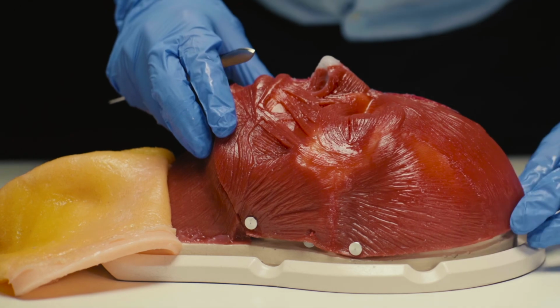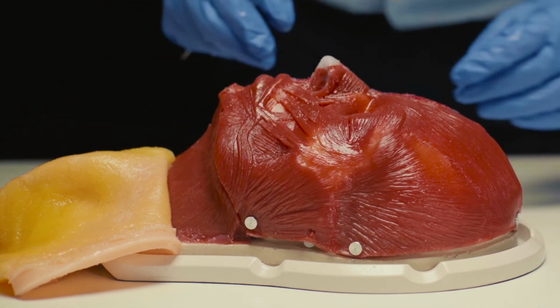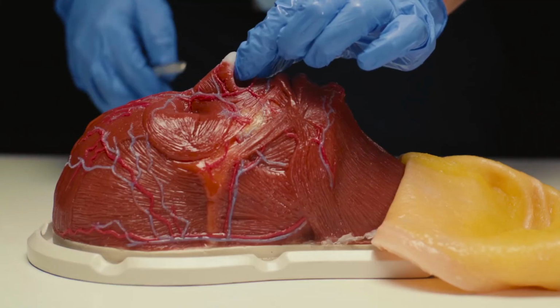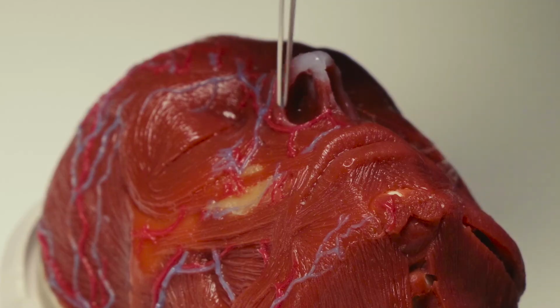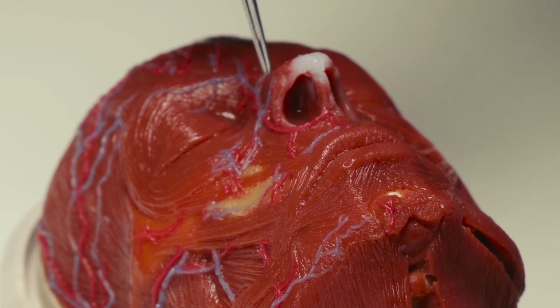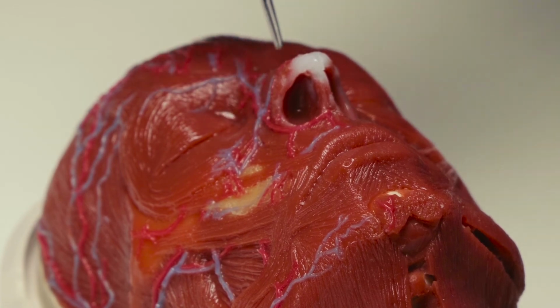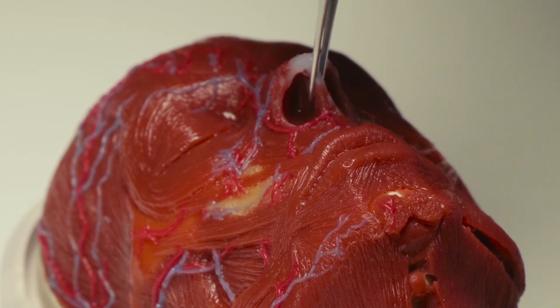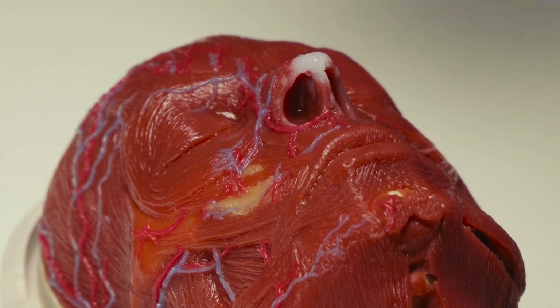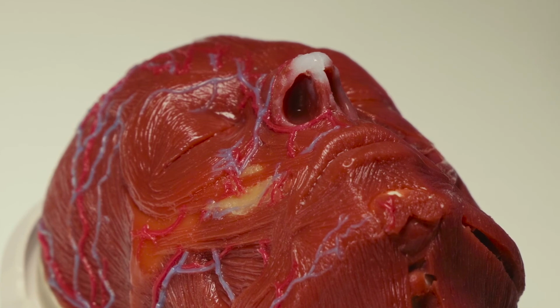As regards the nose, the consistency of the cartilage is very similar to the one in human beings. There are the alar cartilage, the muscular layer with the transversal nasalis, the lateral cartilage, and the central cartilage here in the spine area. So, if you want to practice, if you want to teach how to apply nose fillers, this simulator is a very good imitation of what happens in a real face.